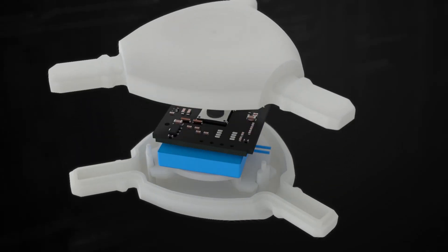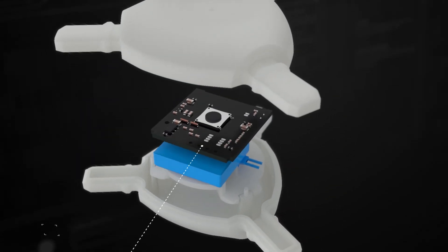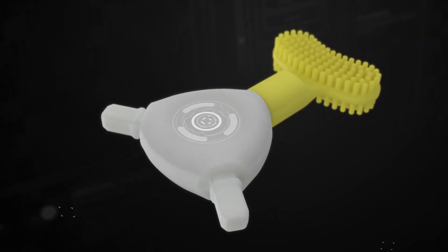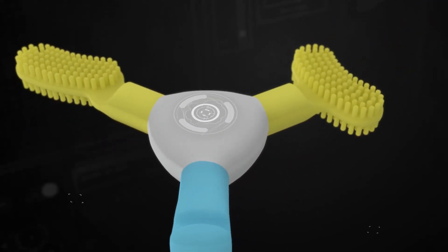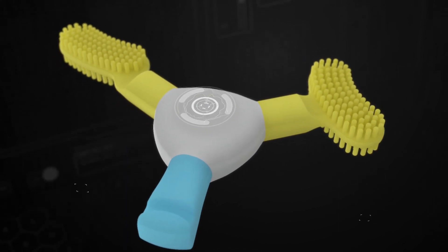The acceleration outcome is achieved through the delivery of specific high frequency vibratory forces which are anatomically targeted through morphologically shaped nodular attachments.